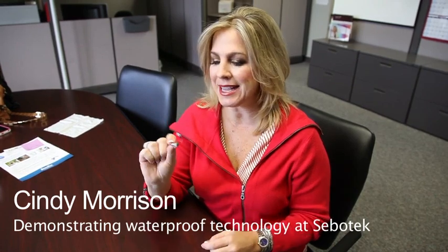Today I'm going to show you some incredible technology that ClearTone has come up with that actually will help make these hearing aids moisture resistant. It is amazing patented technology.